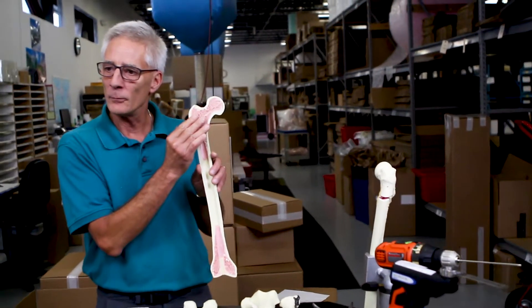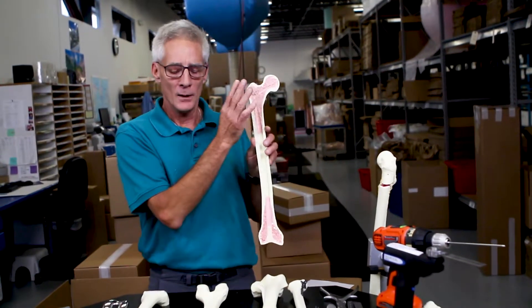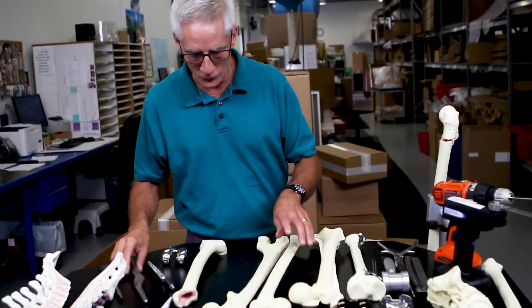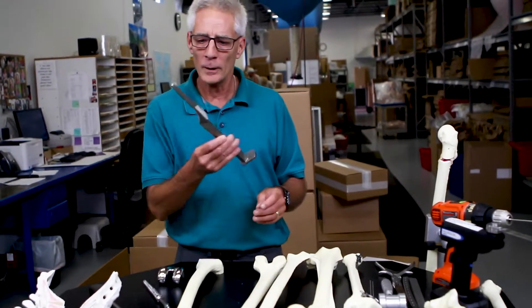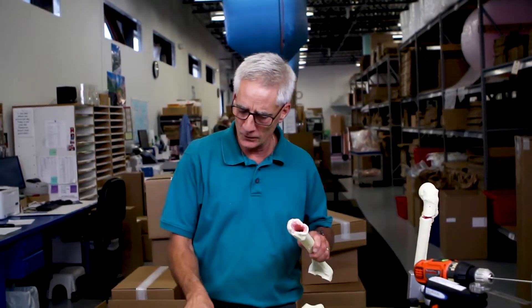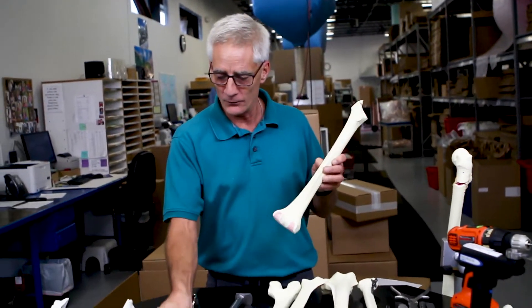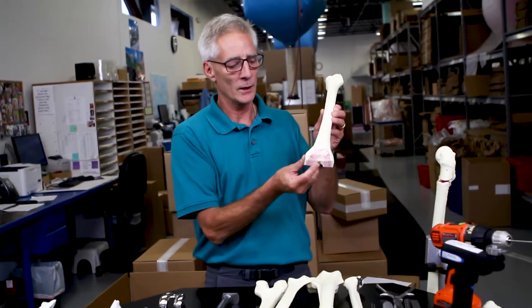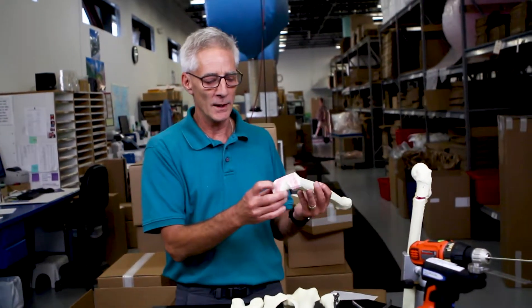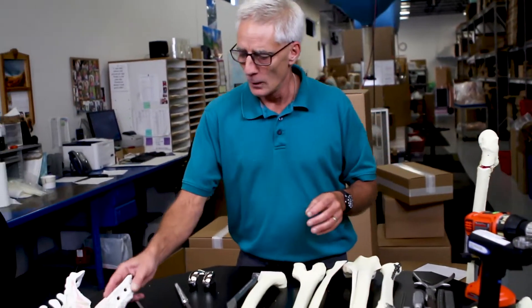The cancellous material is closer to about a seven pound PCF foam with some cellular structure. And this material works really well for doing procedures like total hip, where you have to use a broach and actually remove the cancellous material so you can place your implants. It's very good for total knee, where you have to make multiple cuts and then do your fixation.